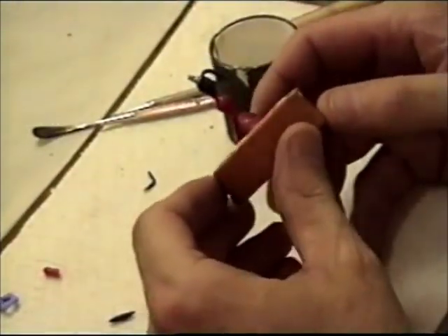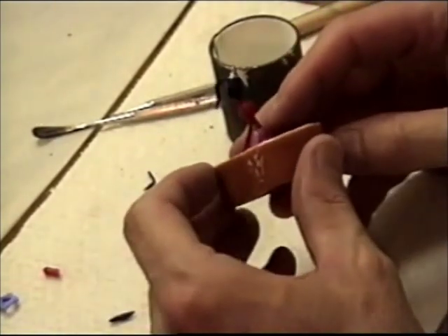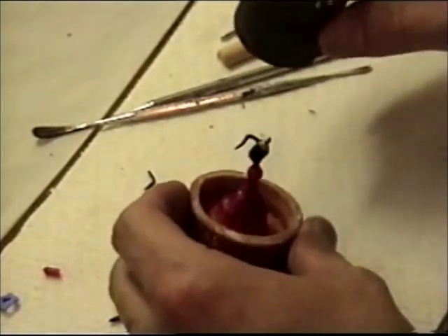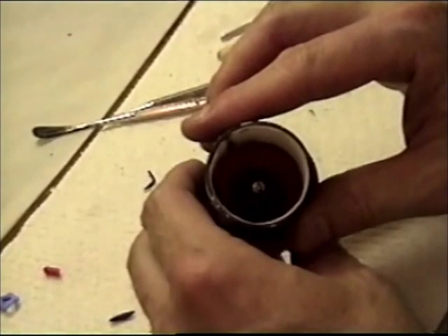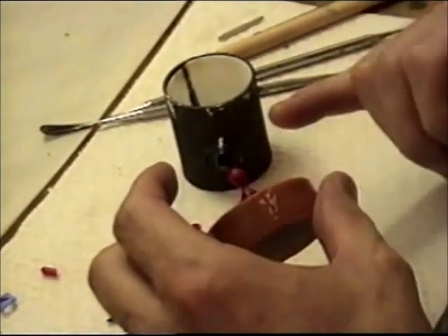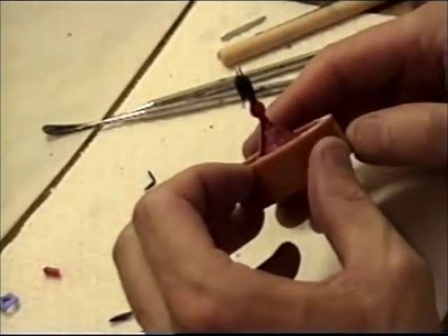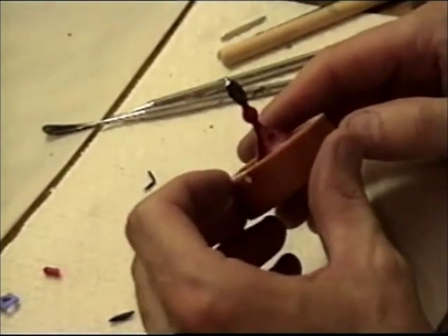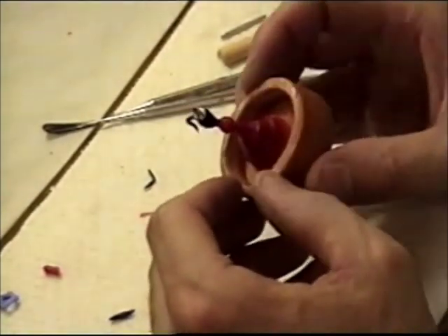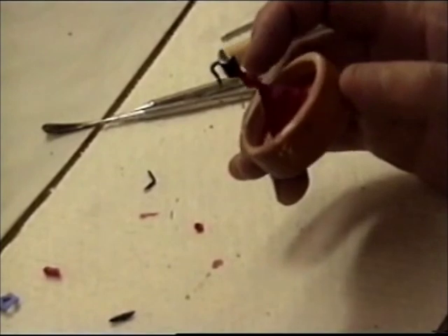The abutment is now sprued. I have applied wax onto the sprue former here and I have my ring. I have a liner that I am going to wet — make sure there is clearance. I am going to be using high noble to cast my abutment here. I am going to be using a high heat investment with the proper ratio for the metal I am going to be using. And that is pretty much the wax up stage of this — I am going to move on now to investing this.